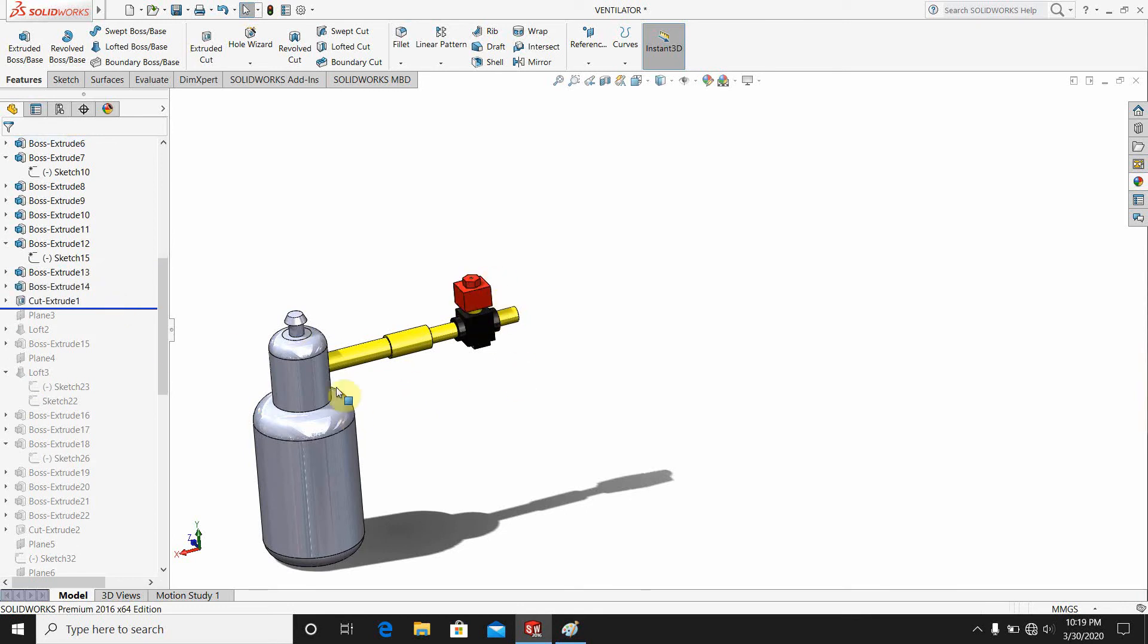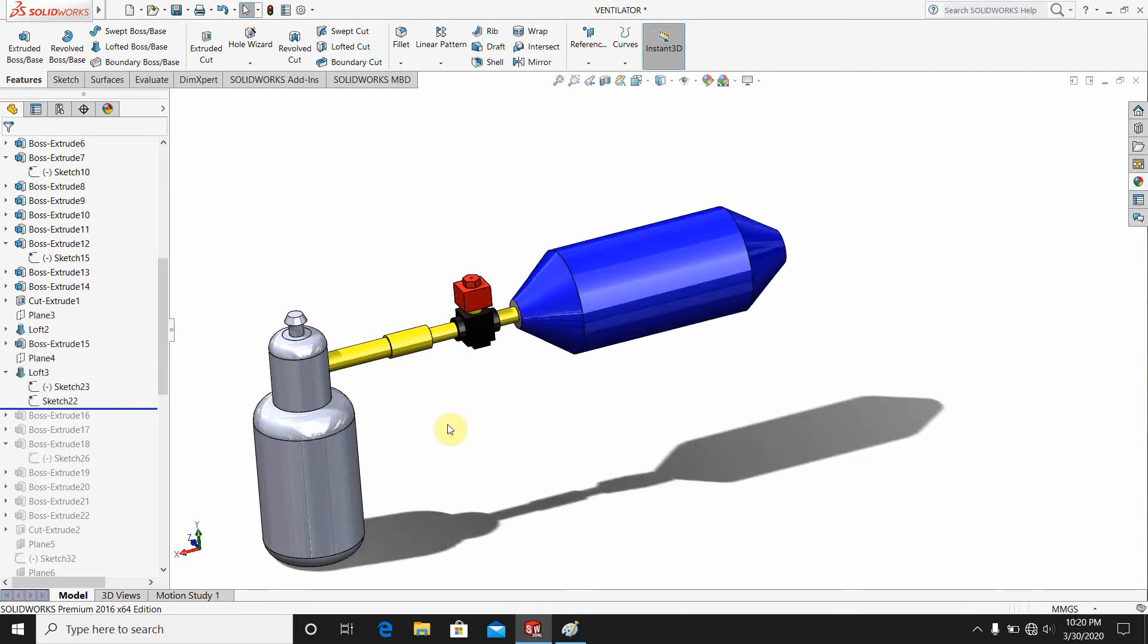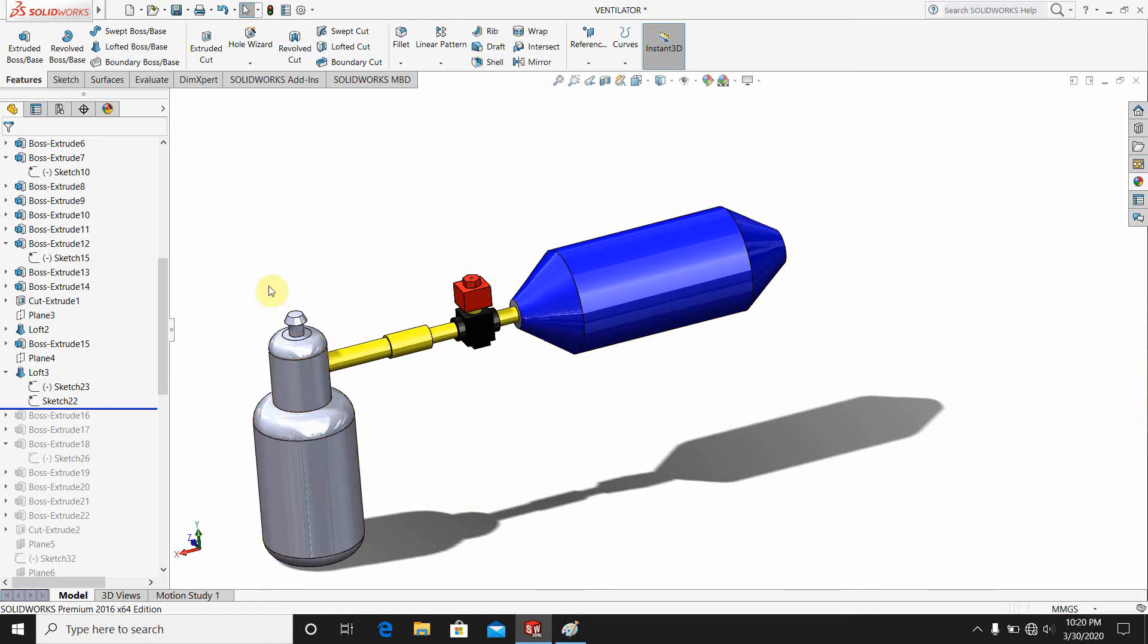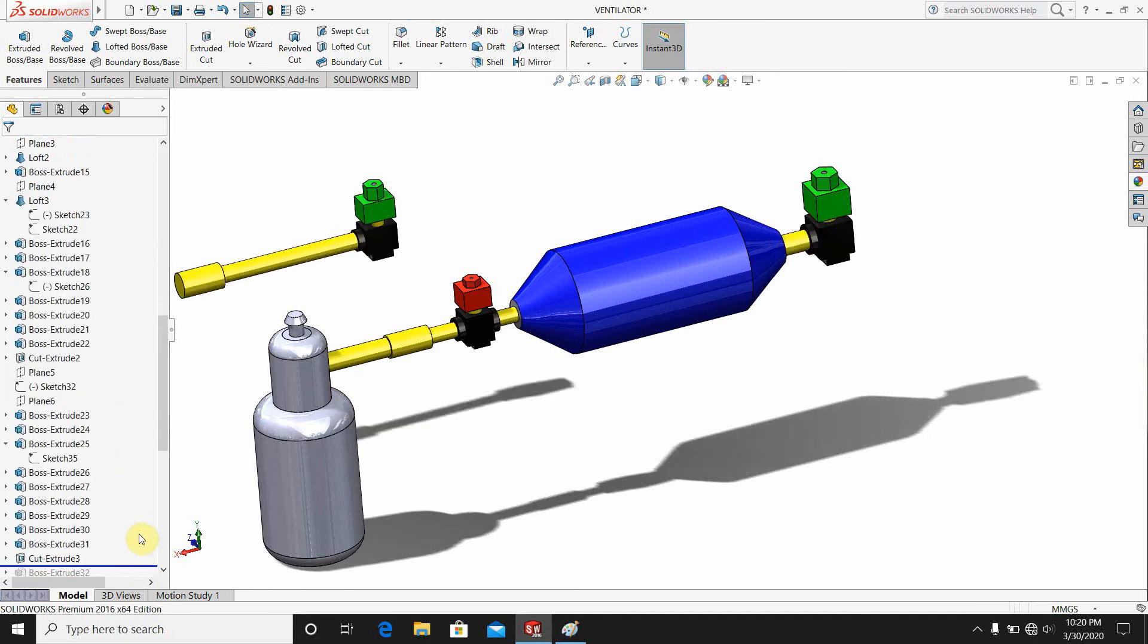The design here, that is the cylinder, here is the pipe, here is the valve or the socket. And then I have done one cylindrical shape where I think the oxygen will be sent from. I have no technical knowledge, I have only made designs here. Then I have also done some designs here.